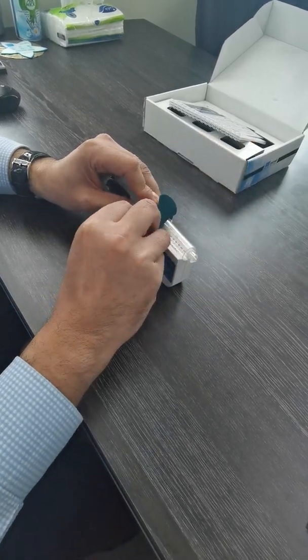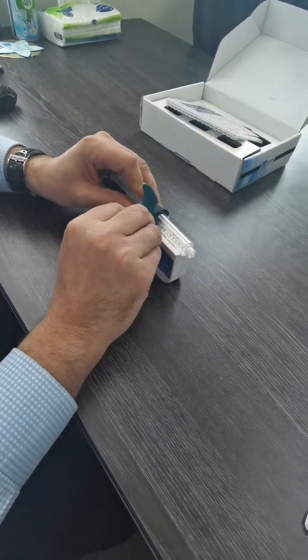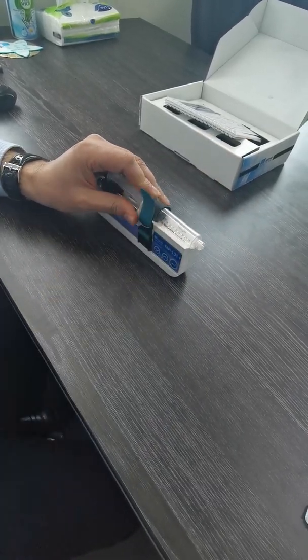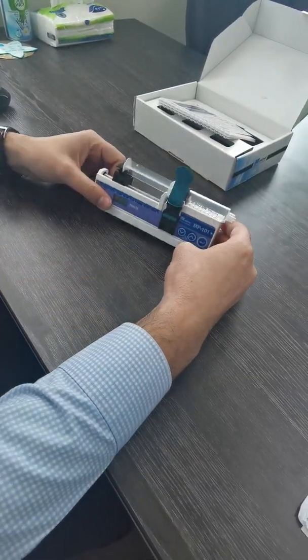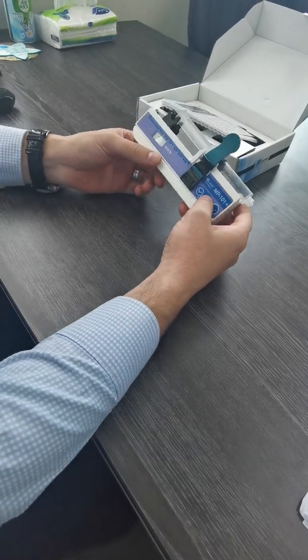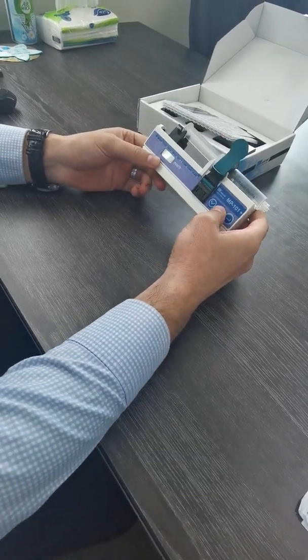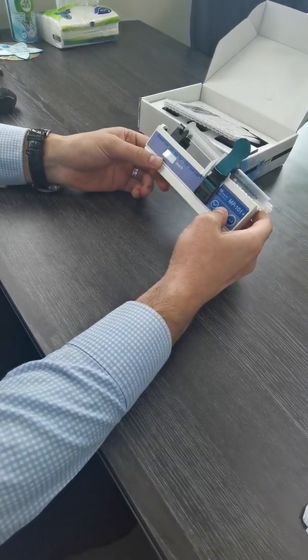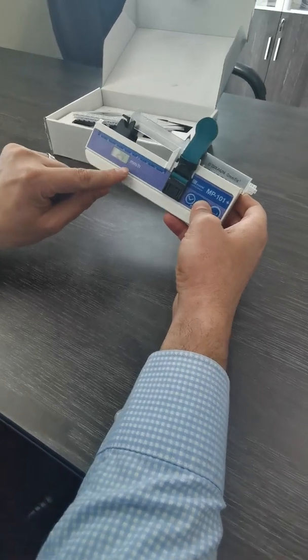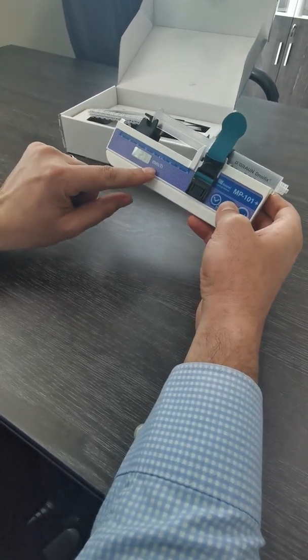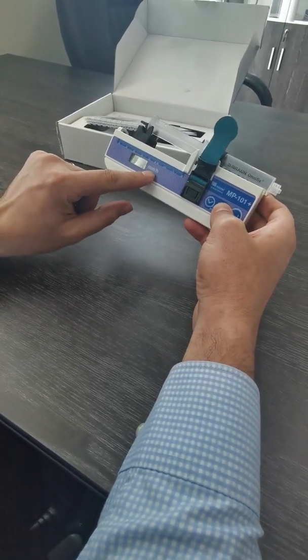Then we will put 50 millimeter per hour because here the rate is in millimeter per hour, so we have to make the measurements as I showed to you.